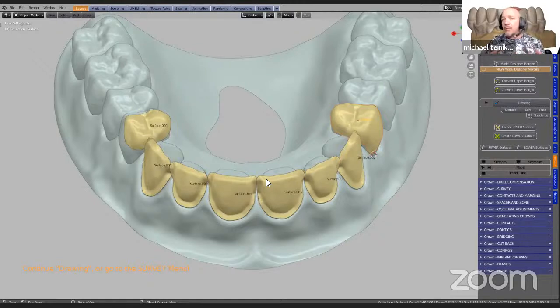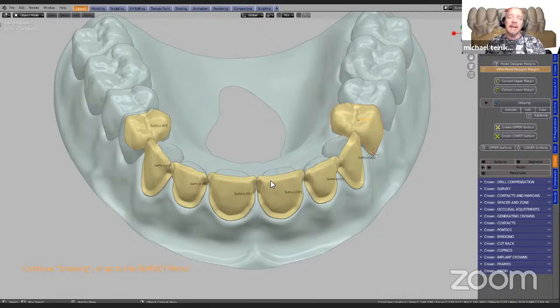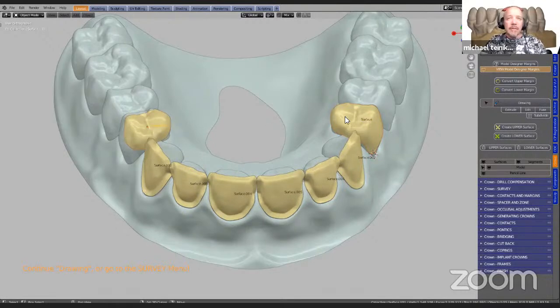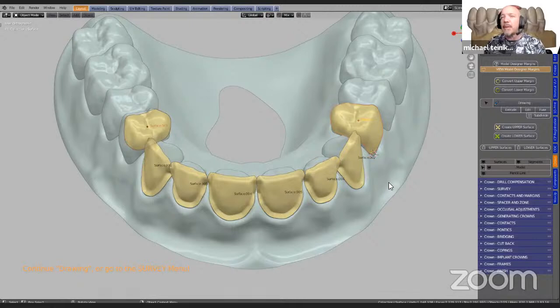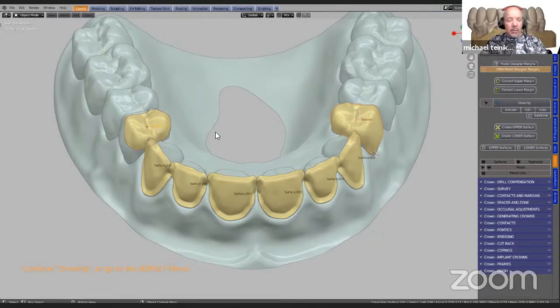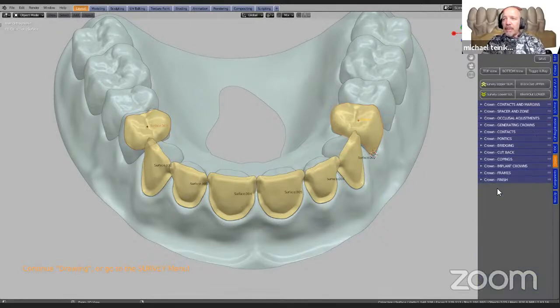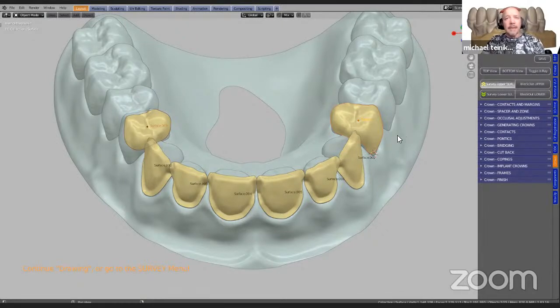Now we know with crown and bridge work and veneers that any little undercuts may hinder the placement of these veneers, so it is critically important that we do this. The first thing I'm going to do is focus on the contacts. All of these are done individually, except if the path of insertion is more or less the same. But if they are close together, we always do them separately. So I'm going to select one, shift left-click to select the other, and go to the next menu button and click the yellow one, which is color coded. We'll just wait for that.